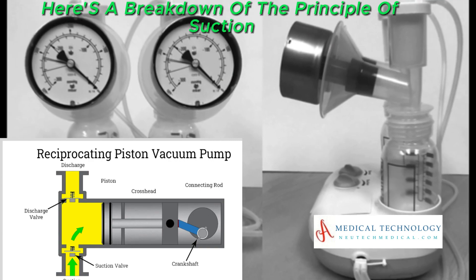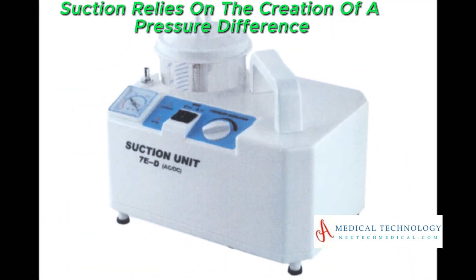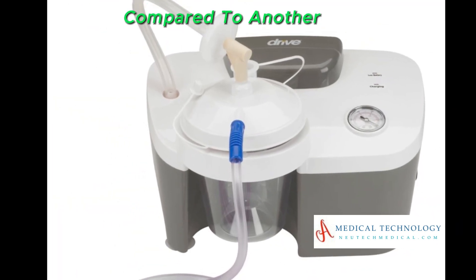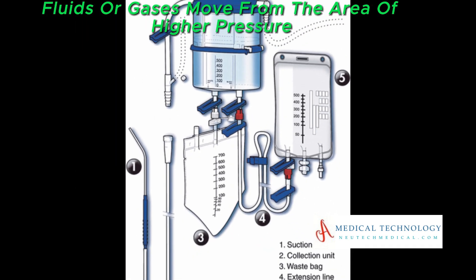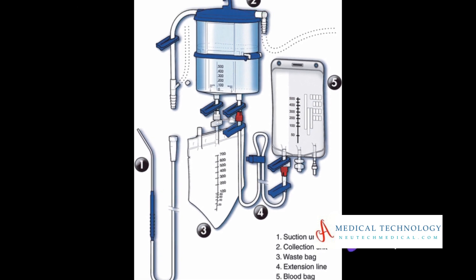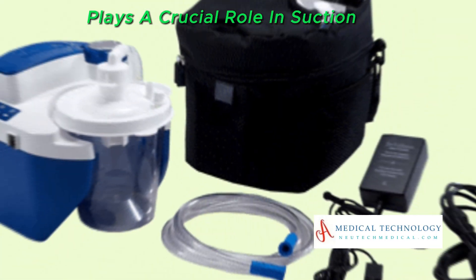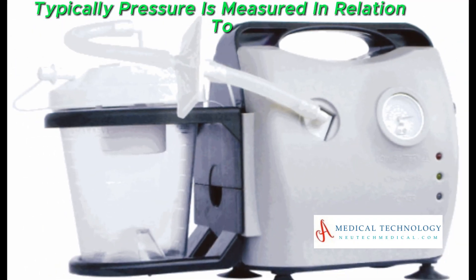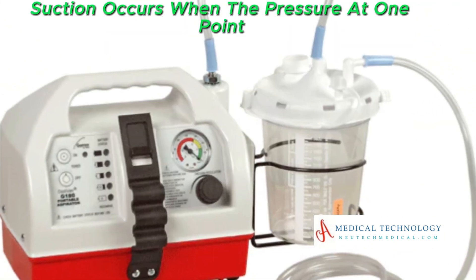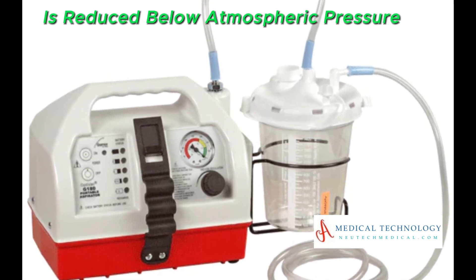Suction relies on the creation of a pressure difference between two points. When there is a lower pressure at one point compared to another, fluids or gases move from the area of higher pressure to the area of lower pressure. Atmospheric pressure — the force exerted by the Earth's atmosphere — plays a crucial role in suction. Pressure is measured in relation to atmospheric pressure, and suction occurs when the pressure at one point is reduced below atmospheric pressure.